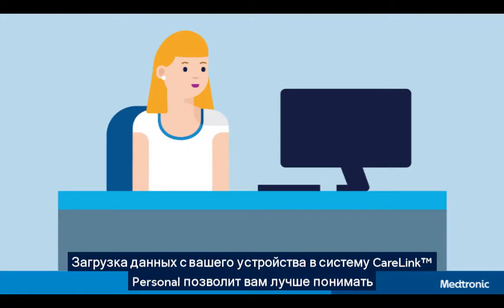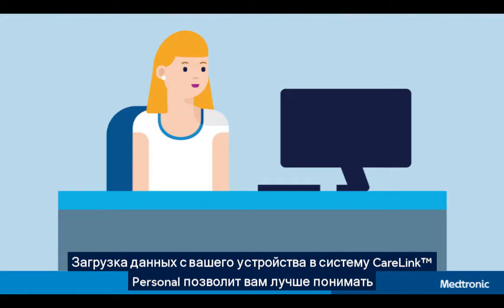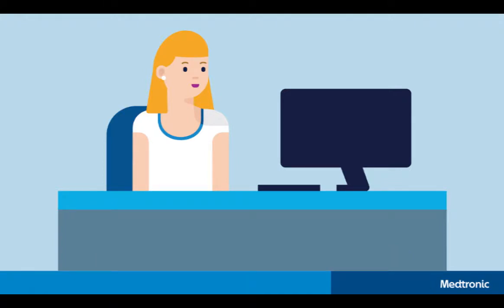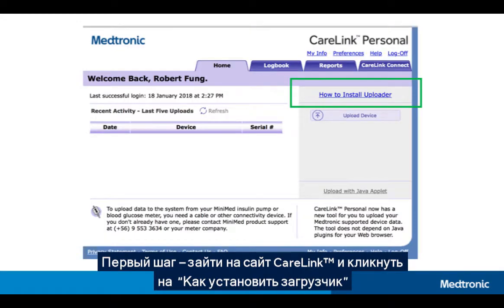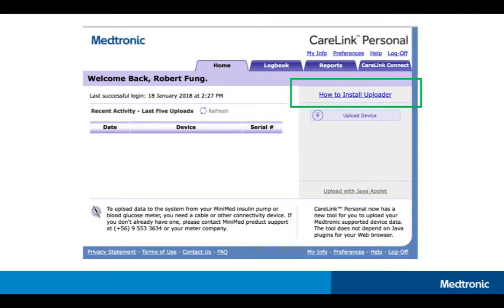Uploading your device data to the CareLink Personal website helps you understand more about your diabetes management and allows you to share your data with your diabetes healthcare team. The first step is to sign in to the CareLink Personal website and click on How to Install Uploader.